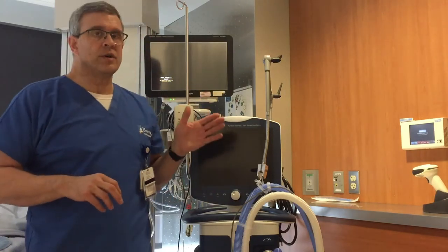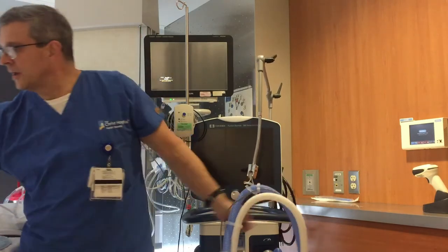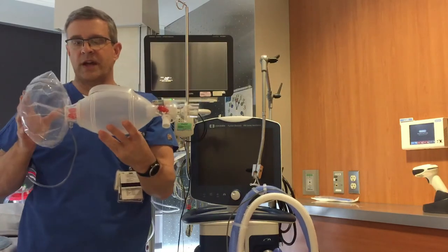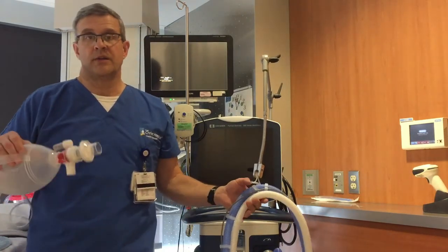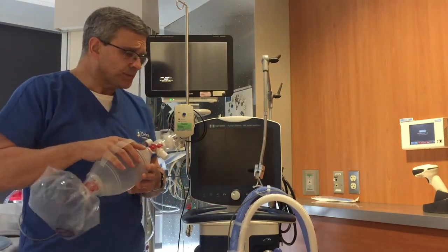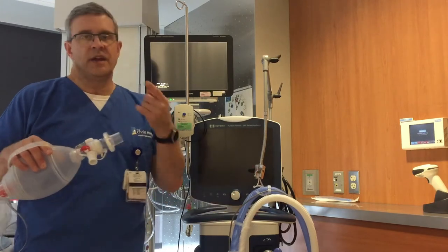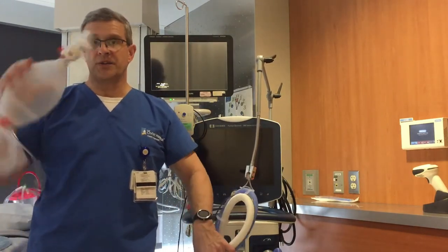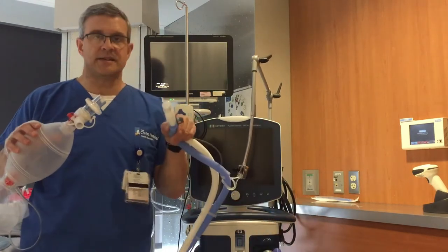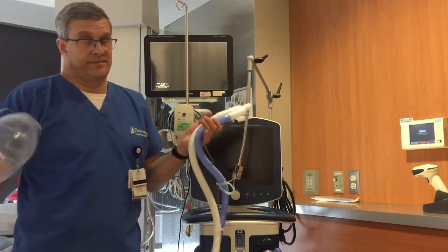One of the big take-home points from today: if you are ever unsure that your ventilator is working properly, or that your patient is not being ventilated properly, you can always disconnect them, grab your ventilation bag, and ventilate and oxygenate the patient while you troubleshoot the ventilator or get one of the RTs to come help. With any endotracheal tube or trach, this bag will fit any size, because the connector is always the same size — and it's also the same size as the ventilator connector, so they're interchangeable.